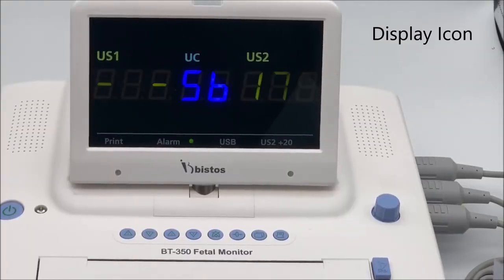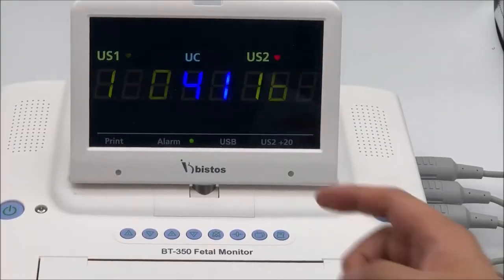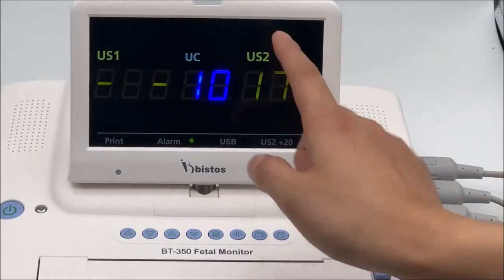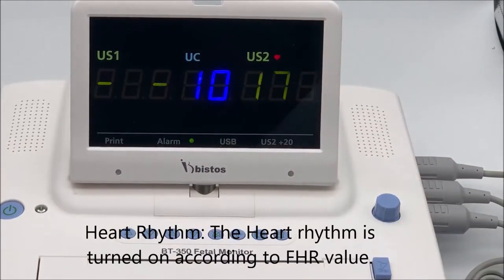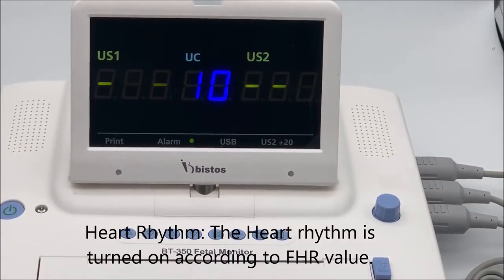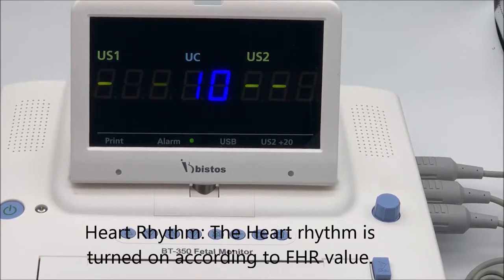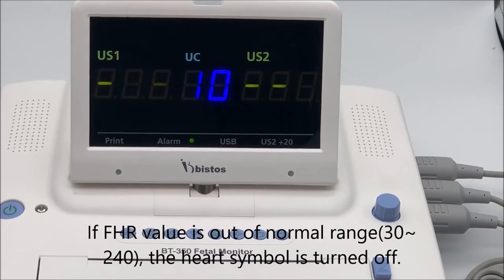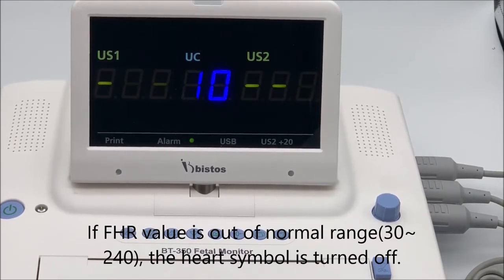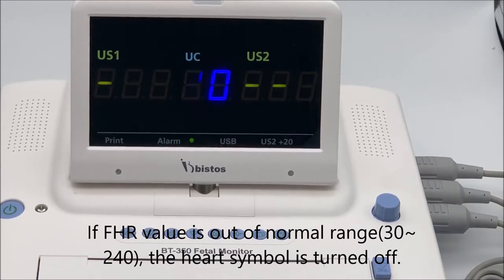Display Icons — Welcome. Heart Rhythm: the heart rhythm icon turns on according to the FHR value. If the FHR value is out of normal range, the heart symbol turns off.